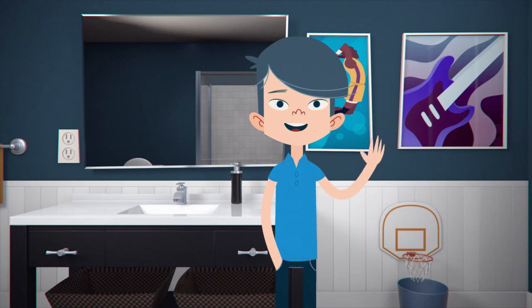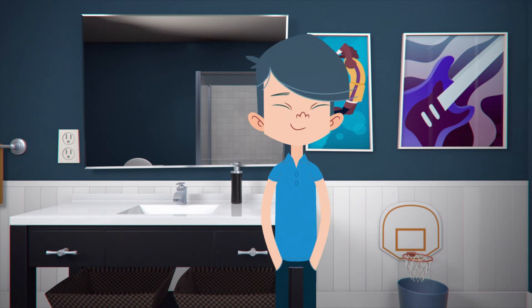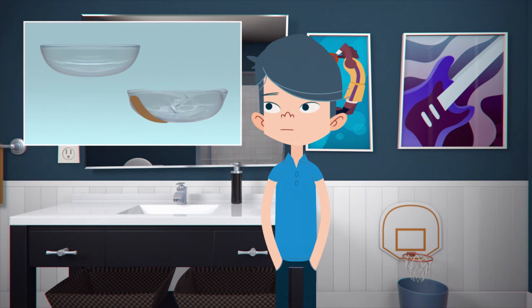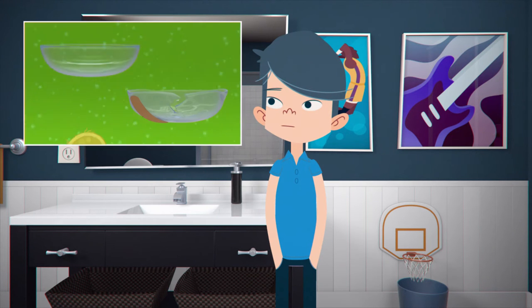This is our friend James. James doesn't wear daily disposables, so he'll need to clean his lenses. Cleaning his lenses will prevent them from deteriorating prematurely, and most importantly, prevent infections.